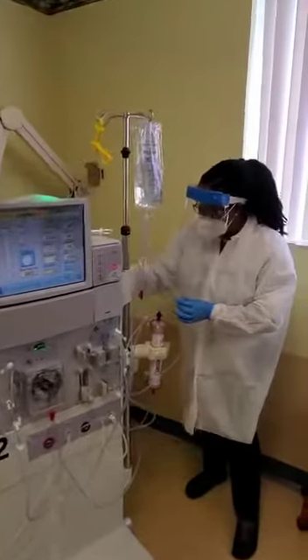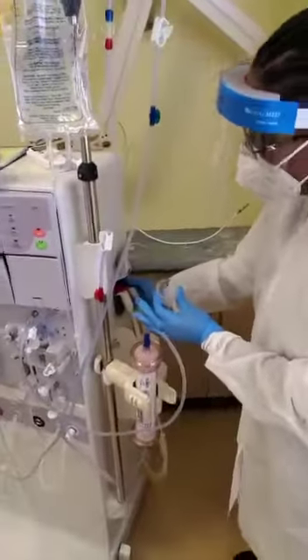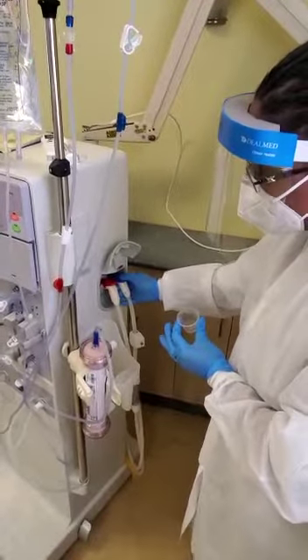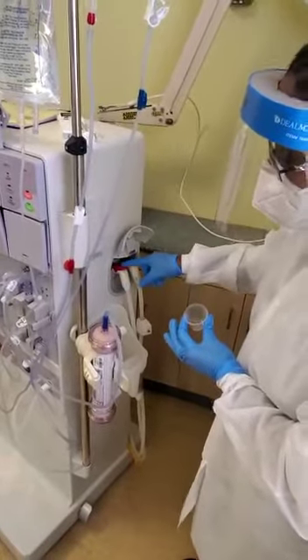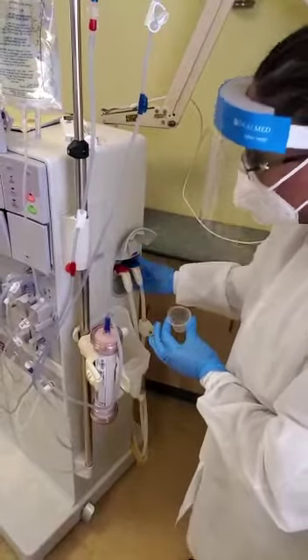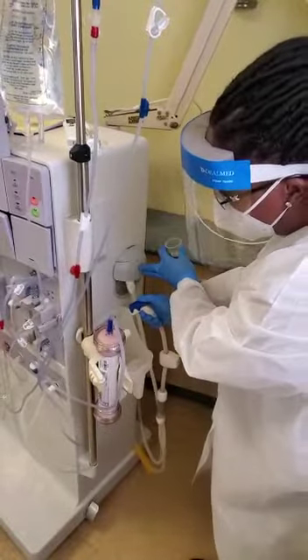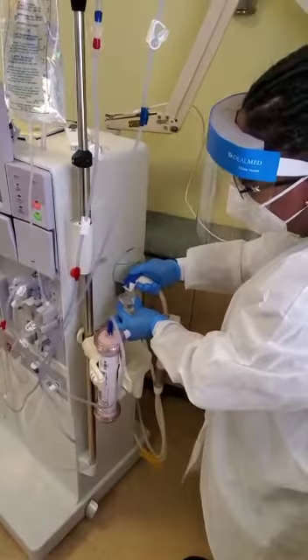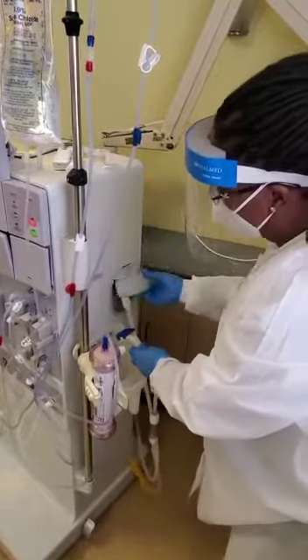I need to take my dialysate in order to check my pH and conductivity. Clean dialysate comes through your blue Hansen connector; dirty dialysate goes to the red. This is where the dialysate exits when the patient is on the machine. So I need clean dialysate, so I'm going to remove the Hansen. Then I'm going to catch my sample — I need about 10 milliliters to check my pH and conductivity.